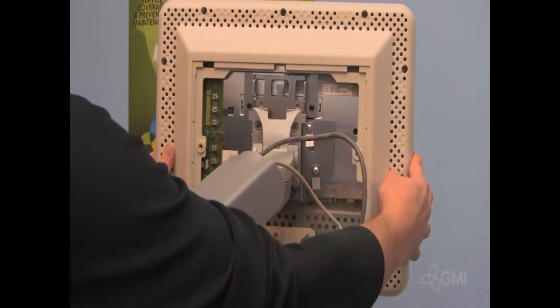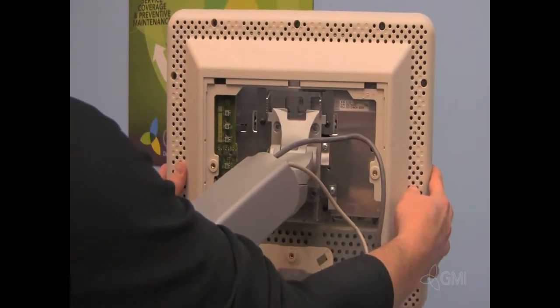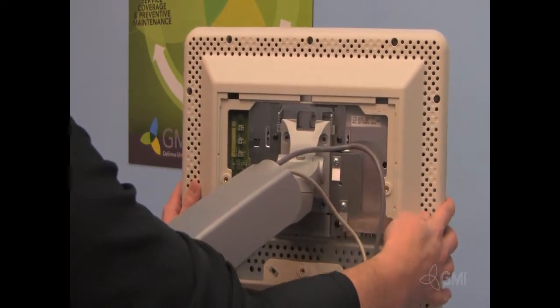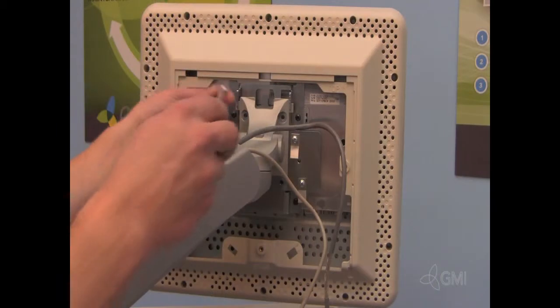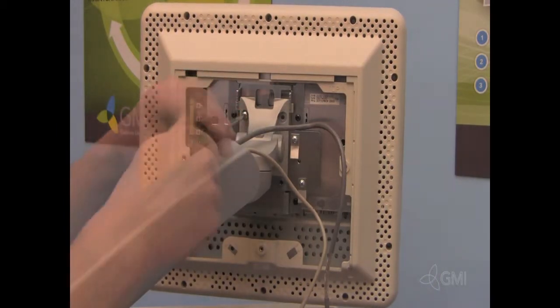Slide the new monitor on the mounting assembly. Replace all four screws in the mount.